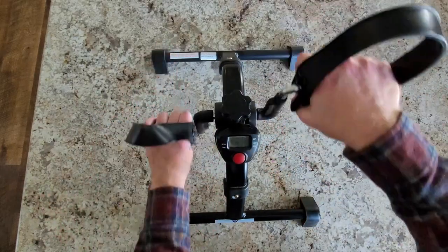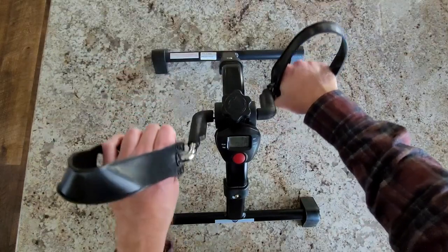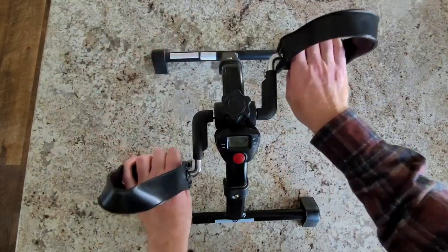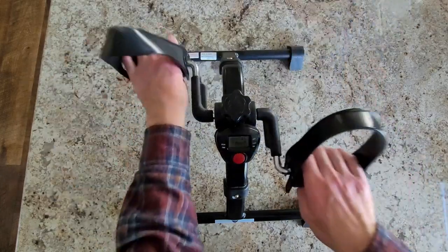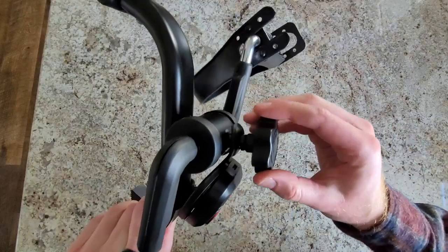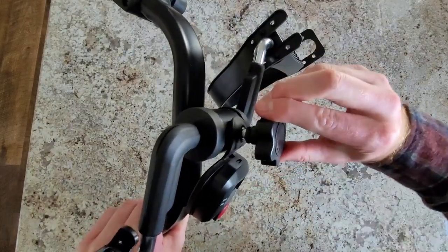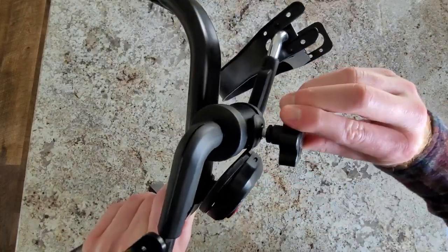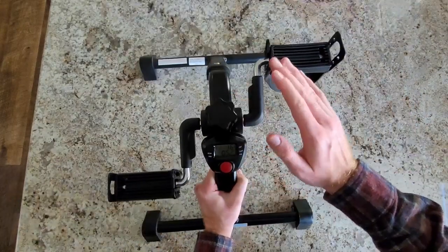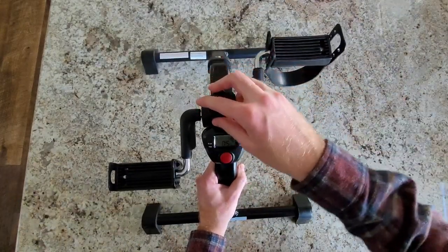You could also switch it up — sometimes I'll go forward and then switch it, and this machine goes backwards as well. And if you're thinking how do I make it harder if it's too easy, too free-flowing, you could turn this knob right here. Let me show you a closer look. This spins, as you can see, so you can make it tighter or looser. When you make it tighter, the pedals get much harder gradually, the more tight you spin this.